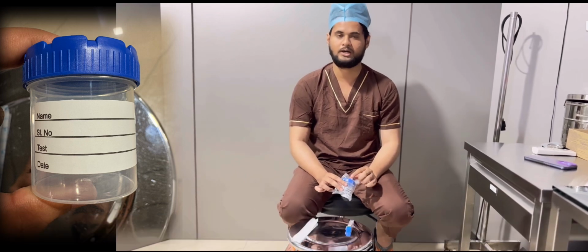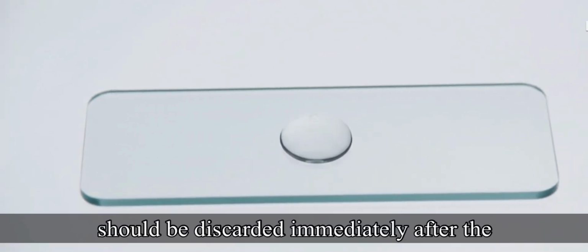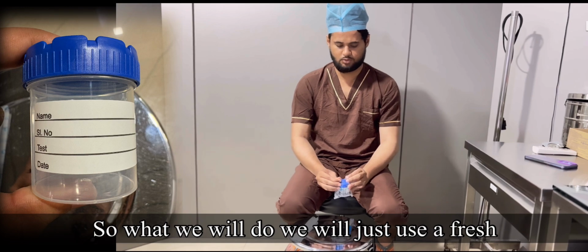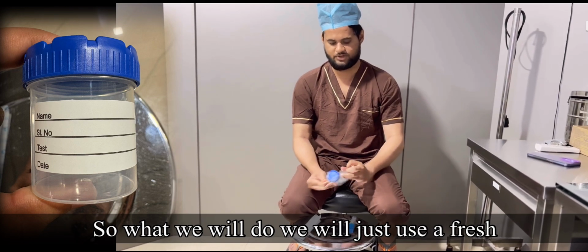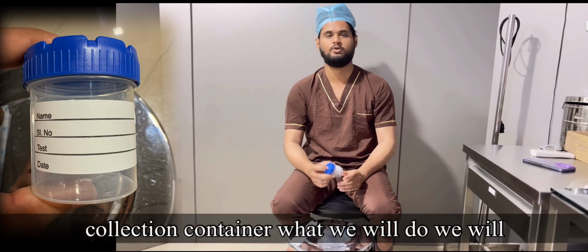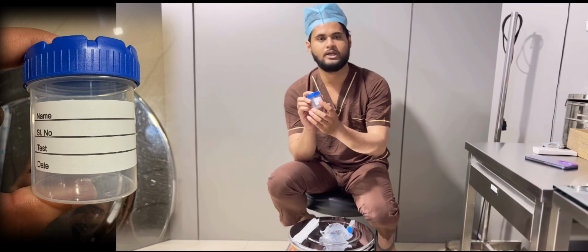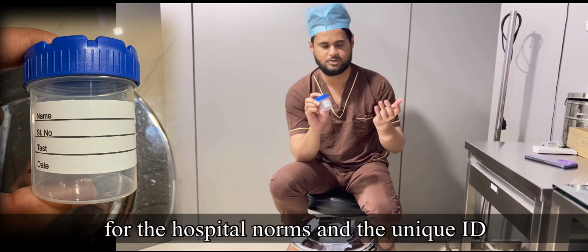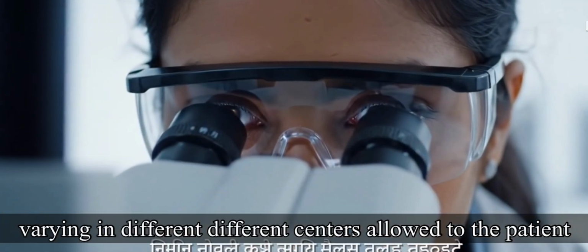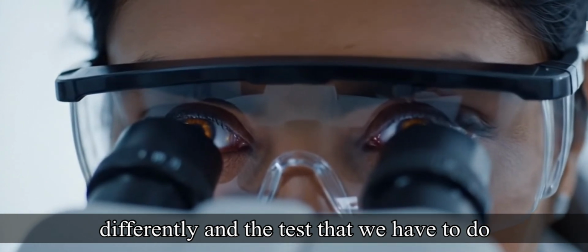That particular container should not already have been in use, or it should be discarded immediately after the analysis has been completed. So we will use a fresh collection container, and on it we will put the name of the patient along with the name of the wife, the unique ID that is provided as per the hospital norms, which varies in different centers, and the test that we have to do.